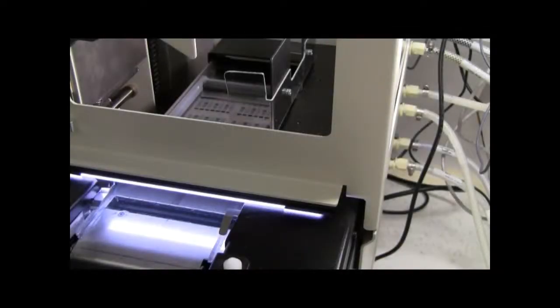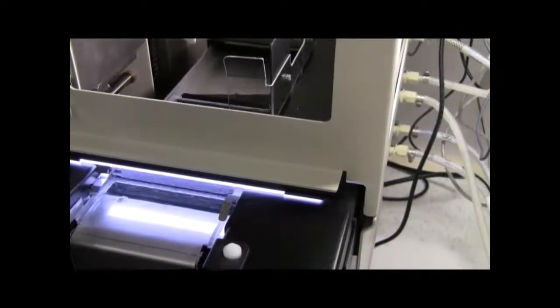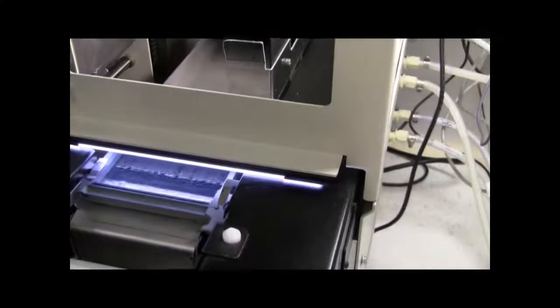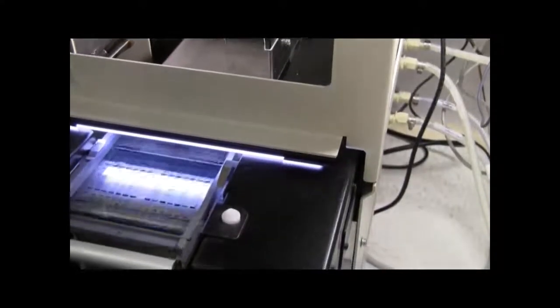The densitometer scans the gel automatically and the data is available to virtually all LIS systems.